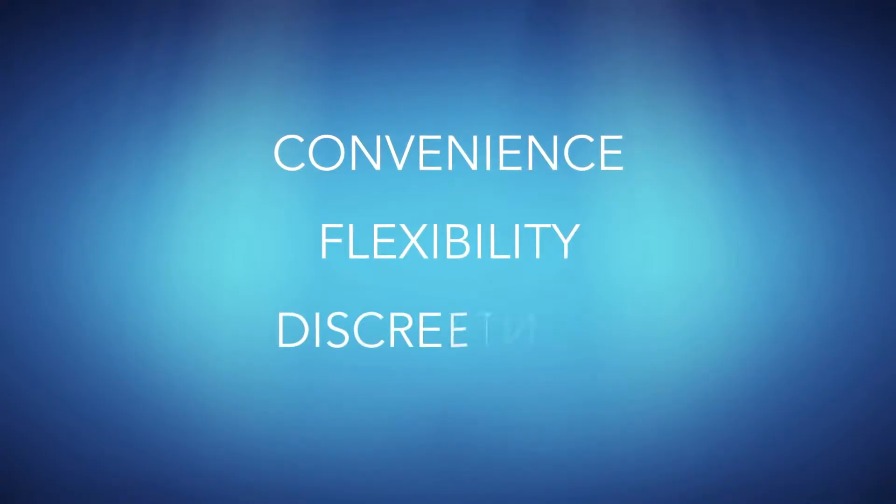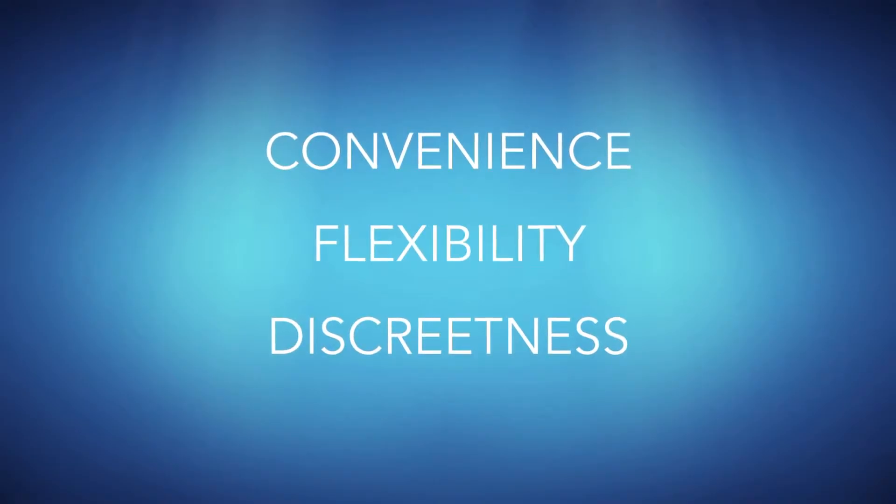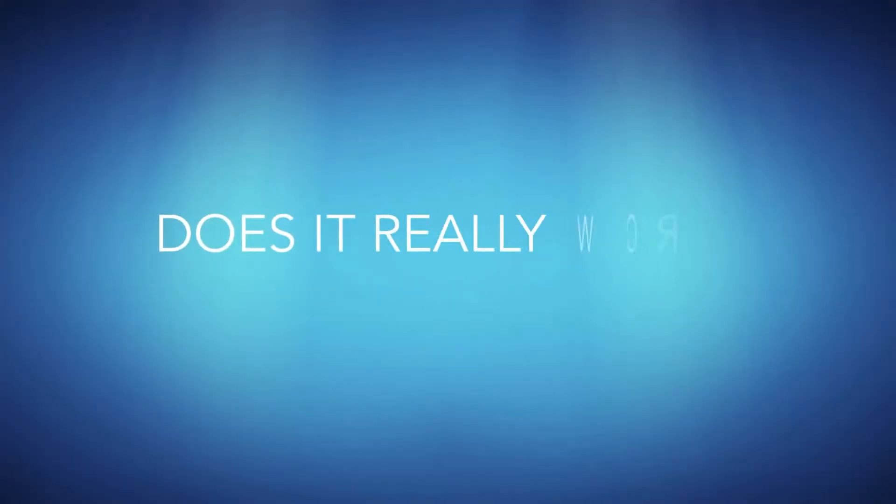Whether it's the convenience, flexibility, or discreteness that attracts patients to Invisalign, there's one question they all have in common. Does it really work?